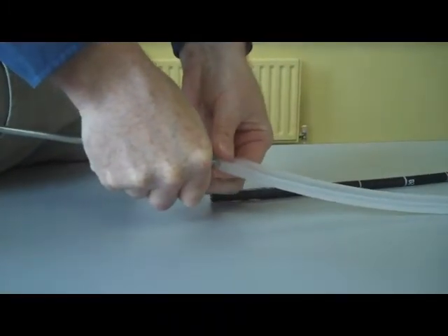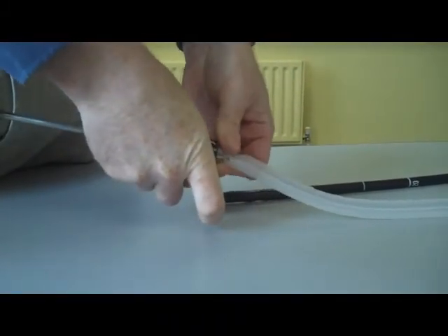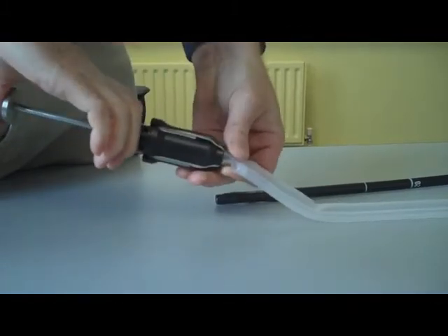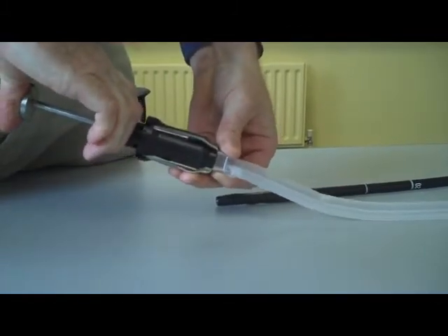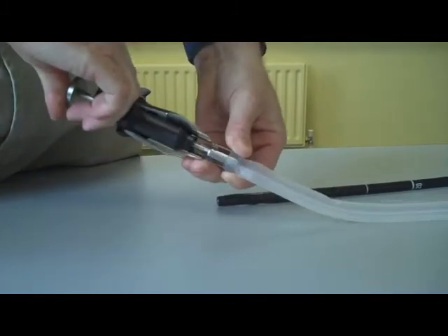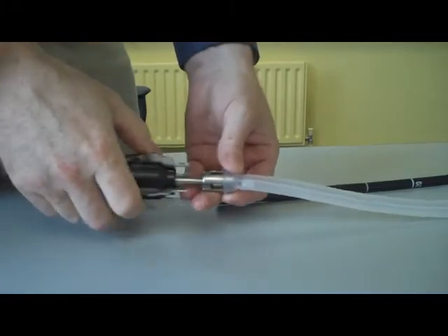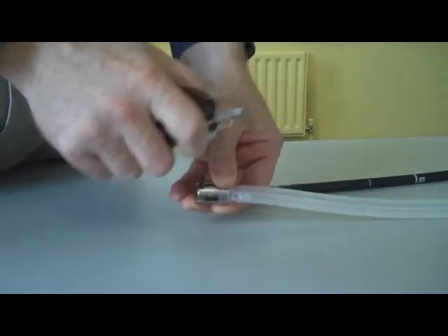To connect the endoscope to the ECD, connect the mounting tool to the ECD as shown, then press down on the mounting tool which will release the support ring. Once in place, the mounting tool can be removed.